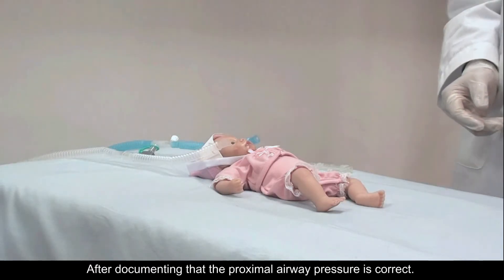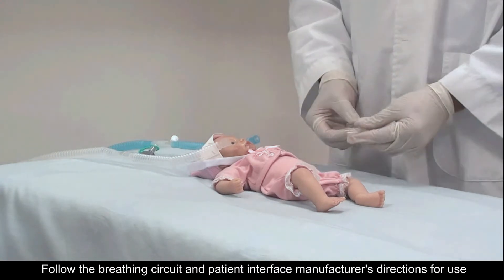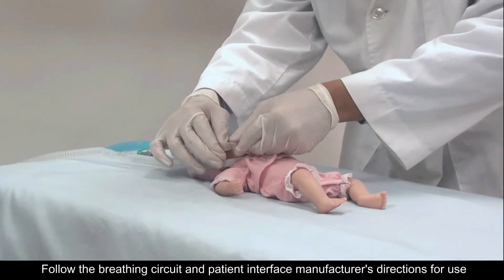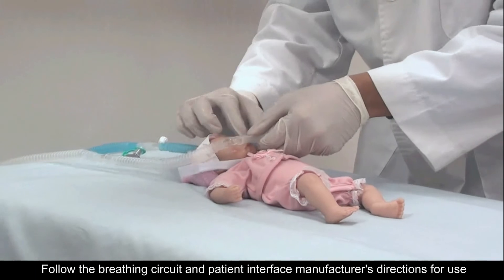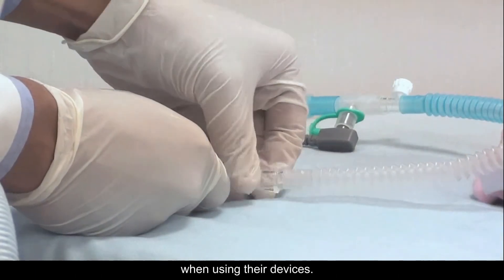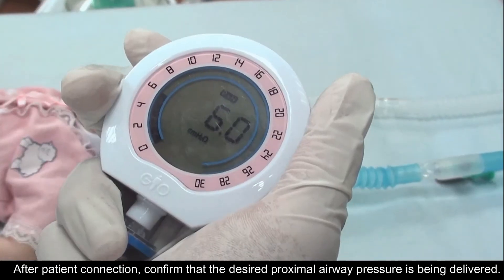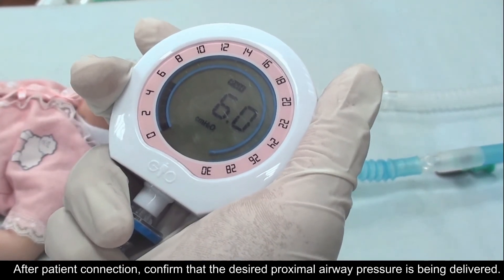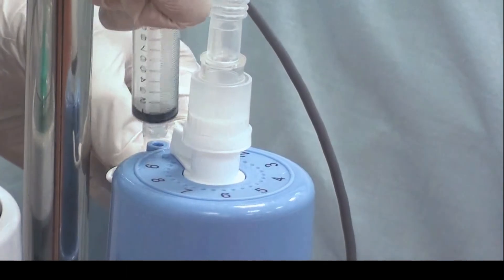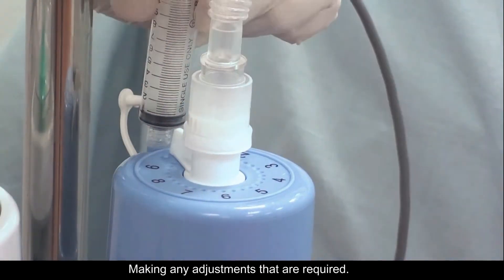After documenting that the proximal airway pressure is correct, follow the breathing circuit and patient interface manufacturer's directions for use when using their devices. After patient connection, confirm that the desired proximal airway pressure is being delivered, making any adjustments that are required.